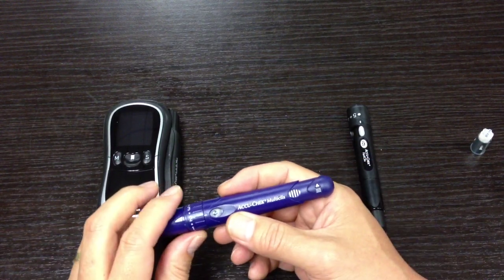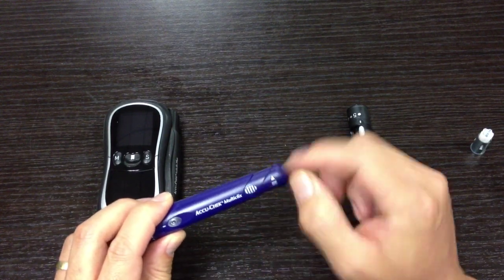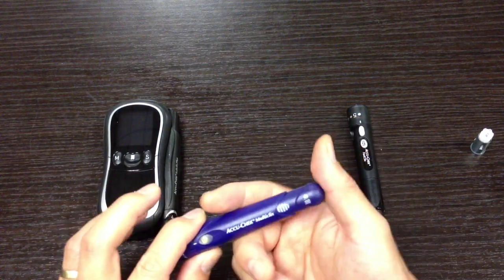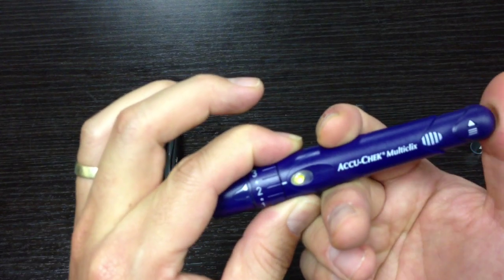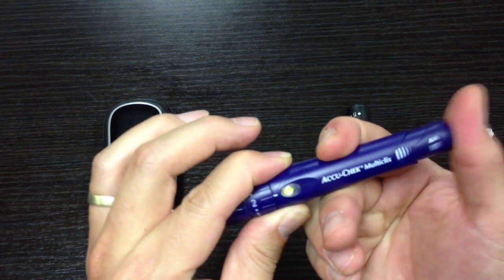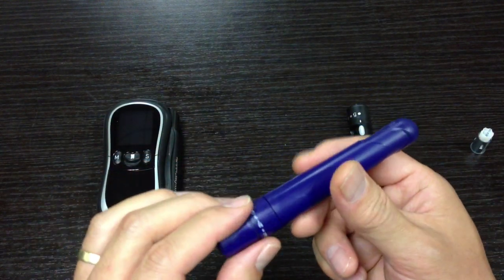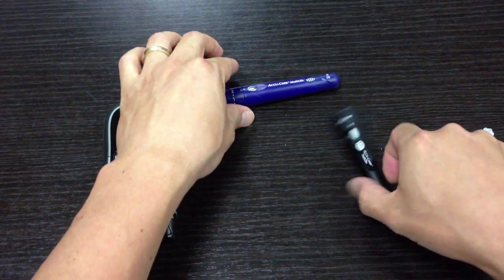The difficulty, I think, was that although the number showing the remaining lancets is right there, it wasn't that intuitive. And sometimes when you went halfway, the yellow indicator stays there but it's not quite engaged. Sometimes you'd have a hard time figuring out whether it was engaged or not, and sometimes it got stuck for that reason. So there were some improvements definitely to be made, and that's what they did.